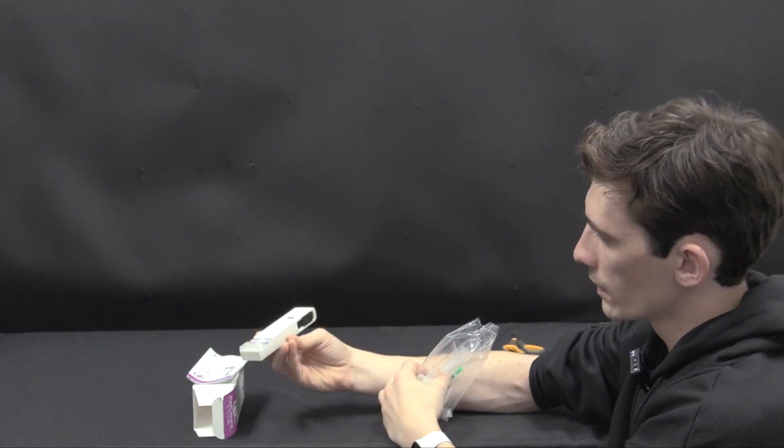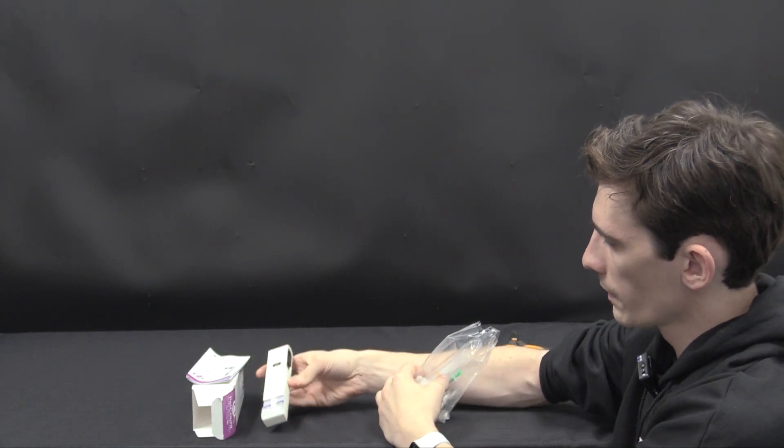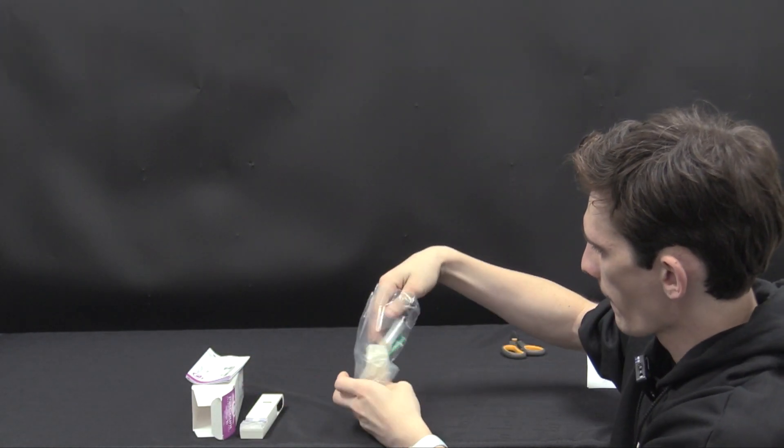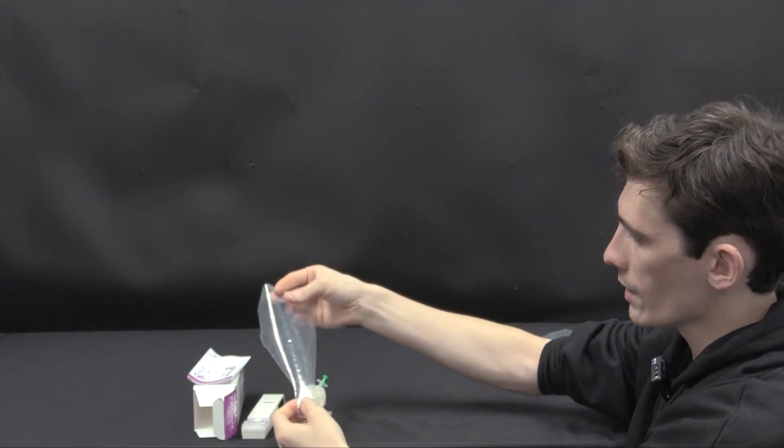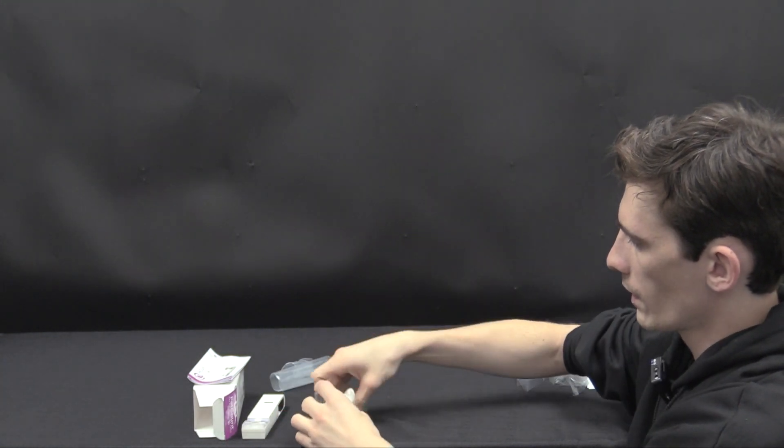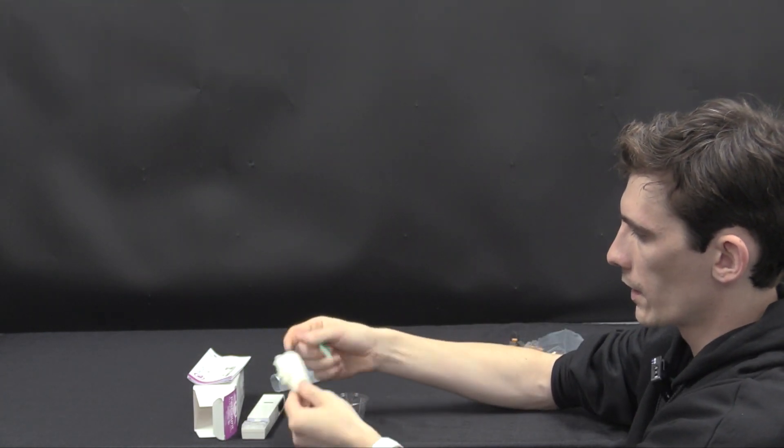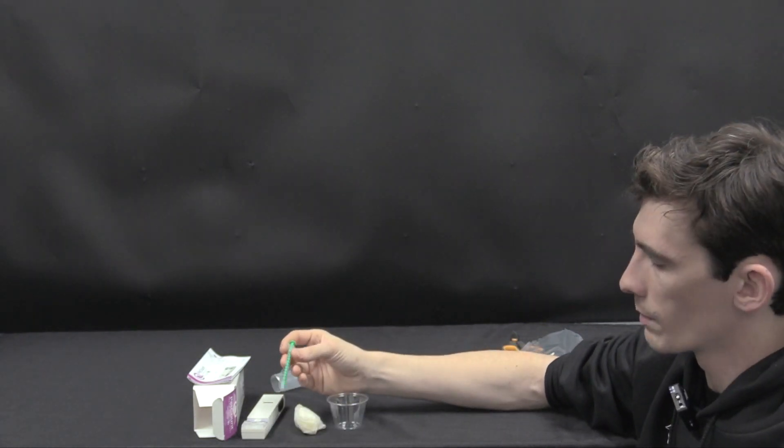Here's the test kit itself utilizing patented technology to deliver you results. We're also going to see included a semen collection cone and container and also a set of gloves to help you do the dirty work and a one milliliter syringe.